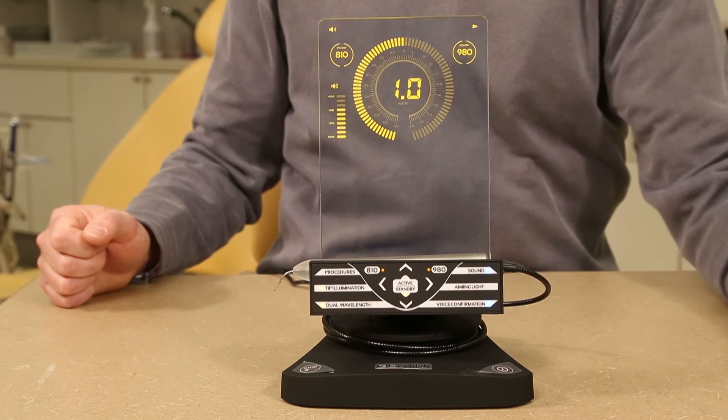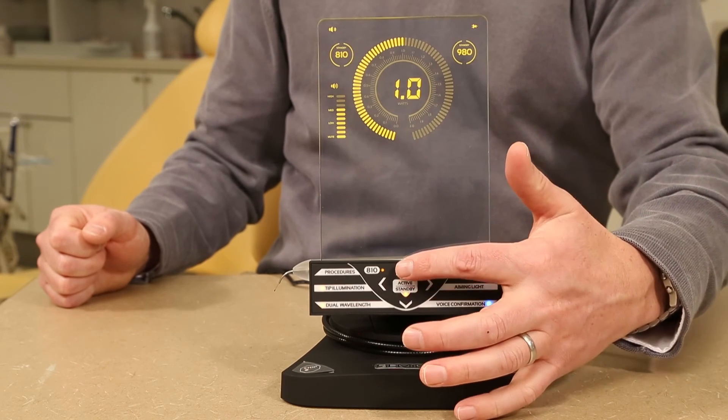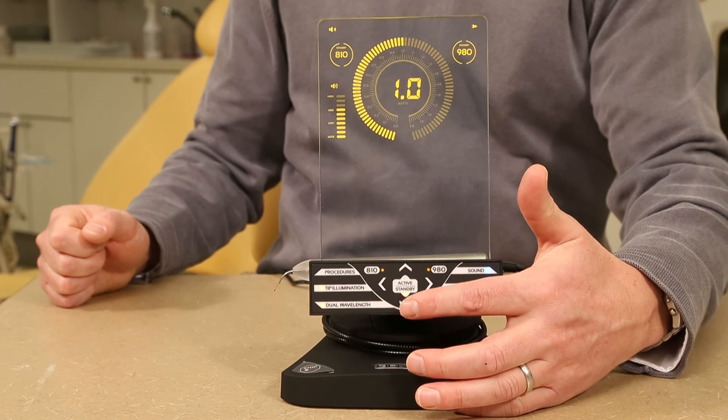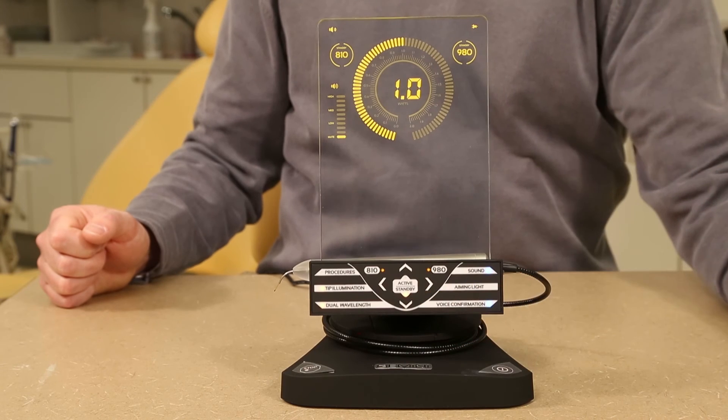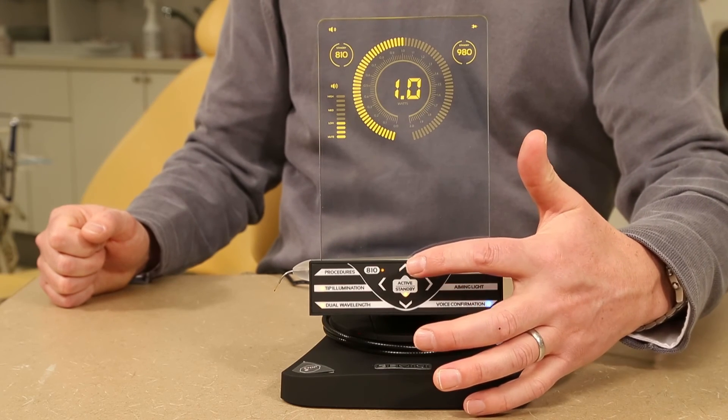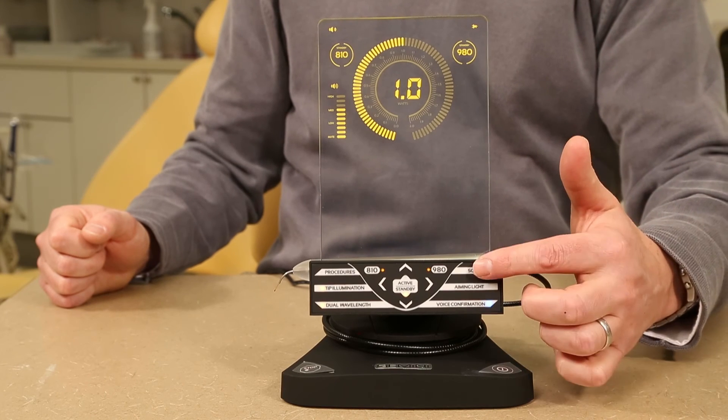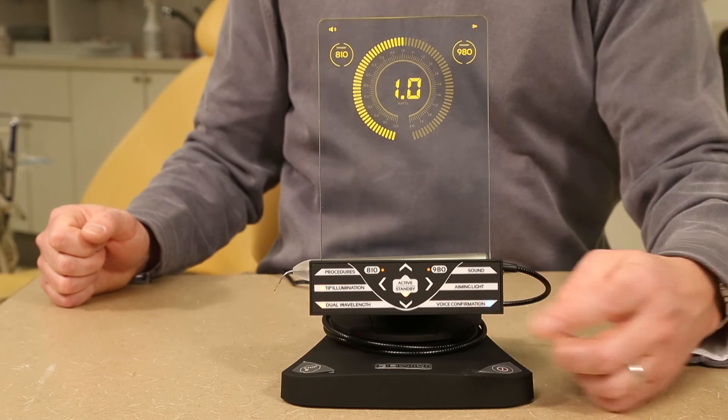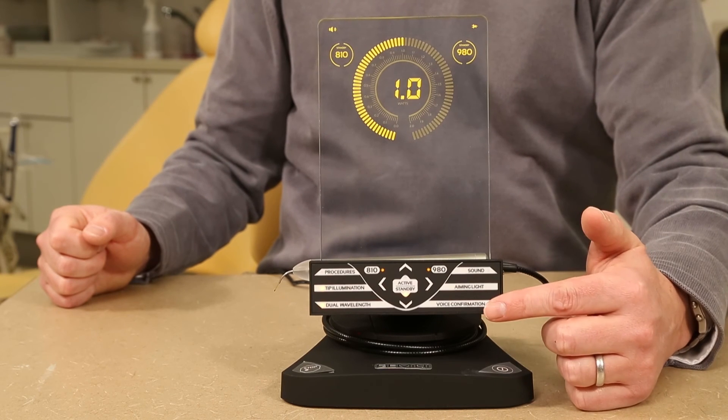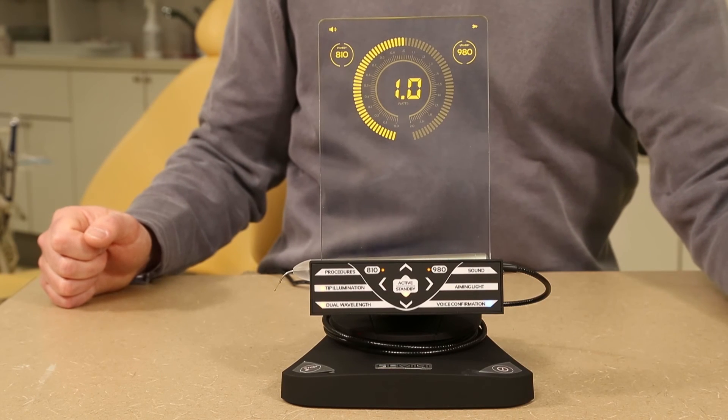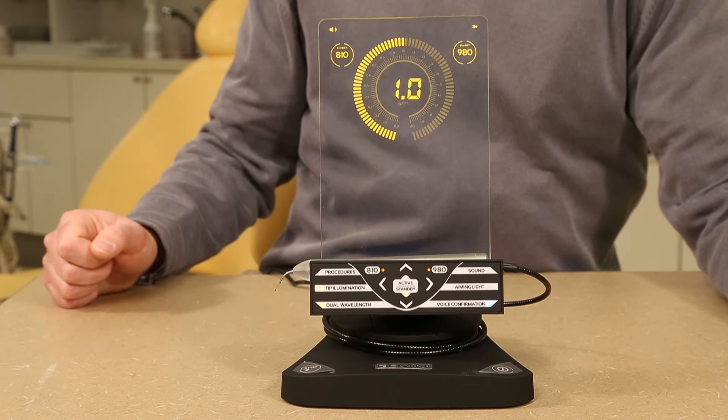The sound button also allows the user to arrow up or down based on the preferred sound output. The voice confirmation button toggles between enabled and disabled to your preference.